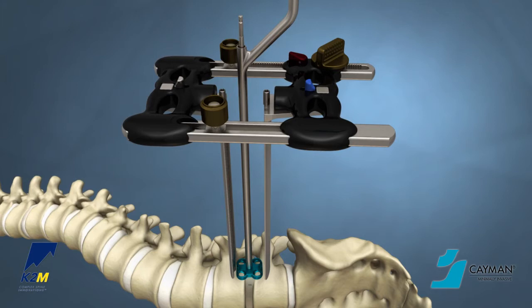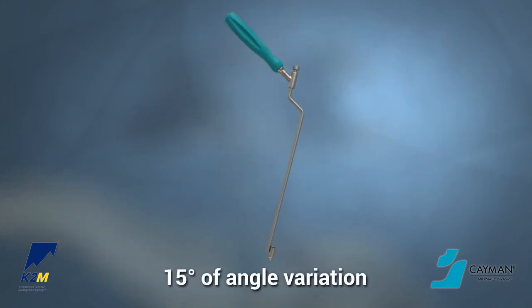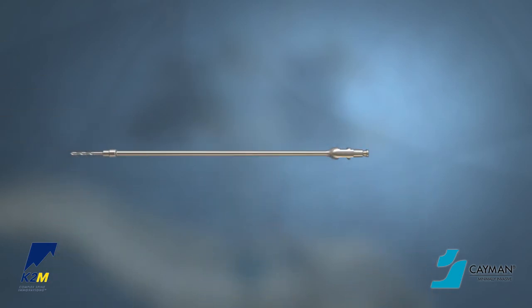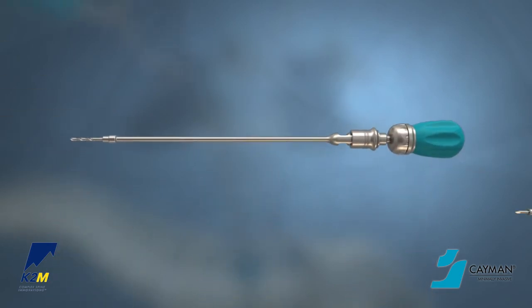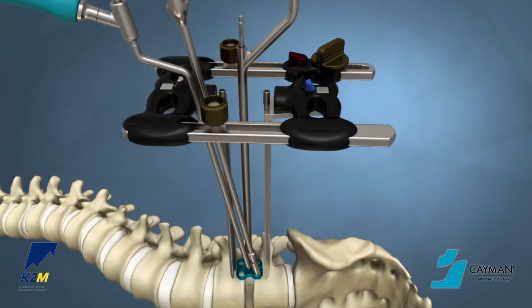There are three options for drill guides: the variable drill guide, which allows 15 degrees of angle variation, the fixed drill guide, and the screw-through fixed drill guide. A drill connected to the aqua-colored ratcheting Hudson handle, the awl, or free-handing can be used to prepare the vertebral body for screw placement.